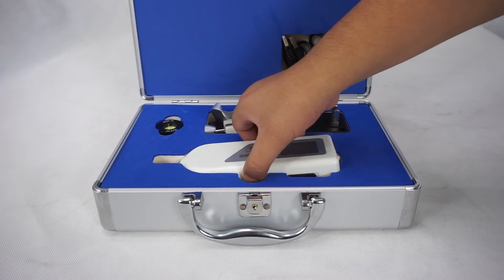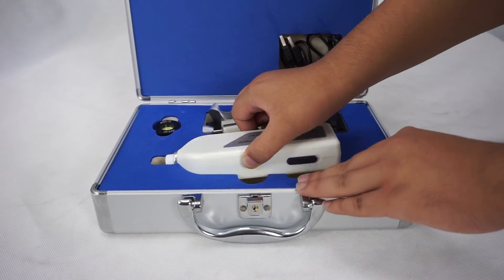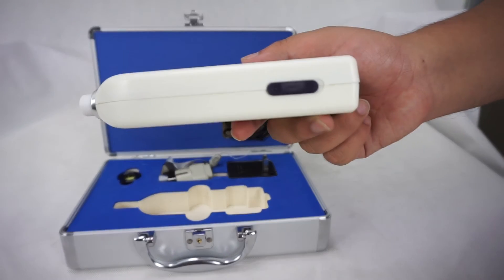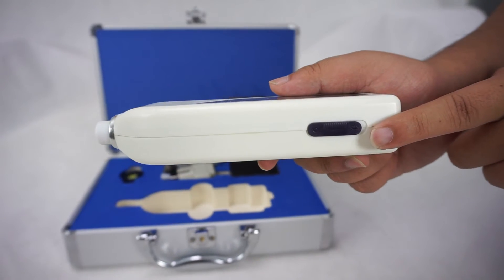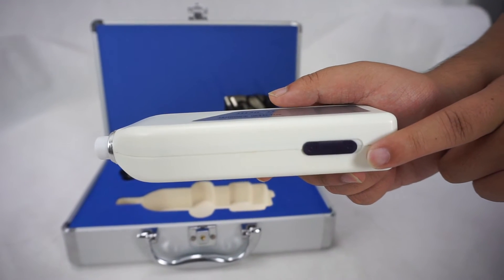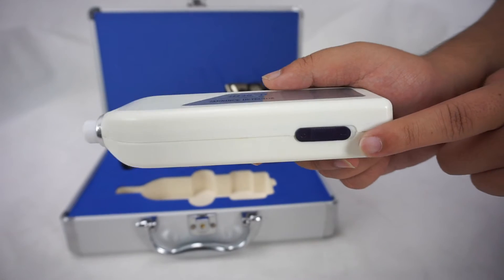Let us see the main unit first. Okay. This is the power switch. We could turn on the machine by the power switch.